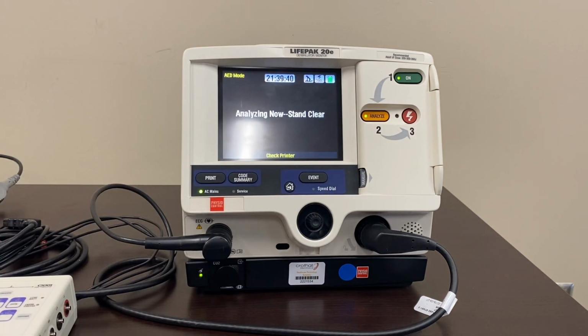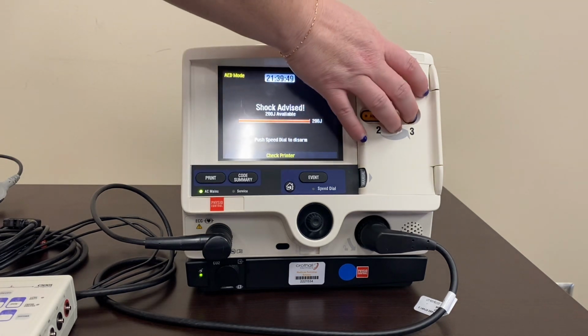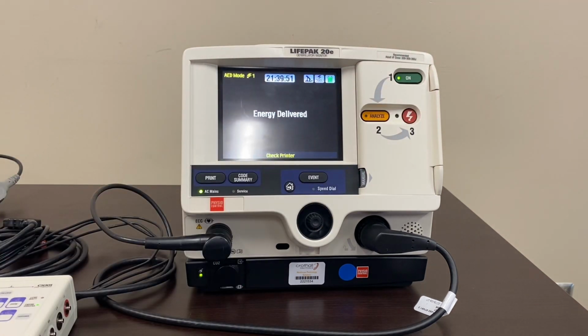Analyzing now. Stand clear. Shock advised. Stand clear. Push to shock. Start CPR.